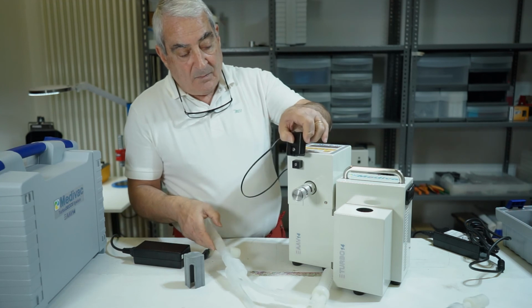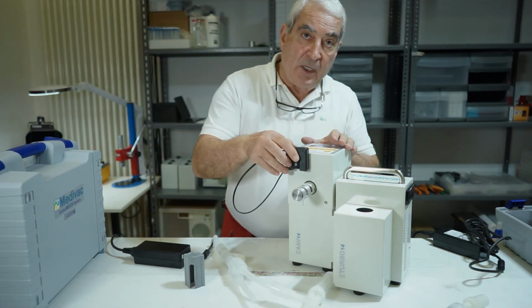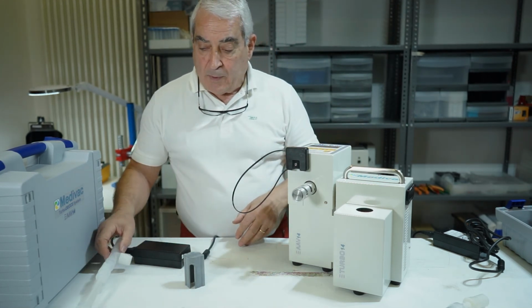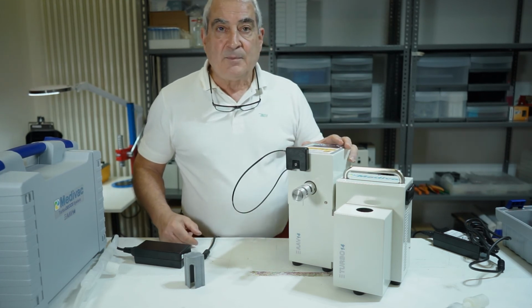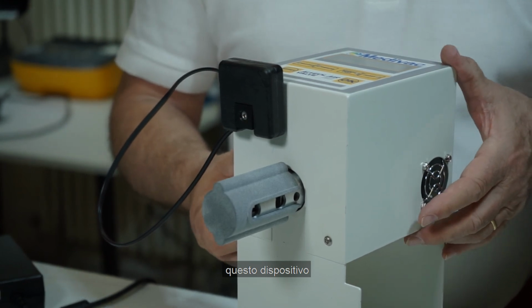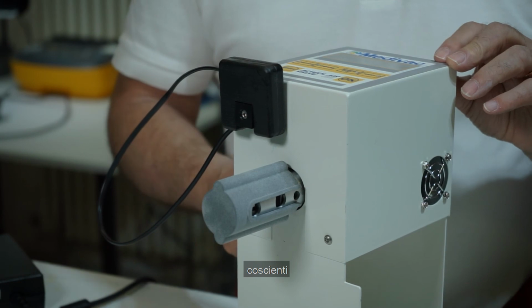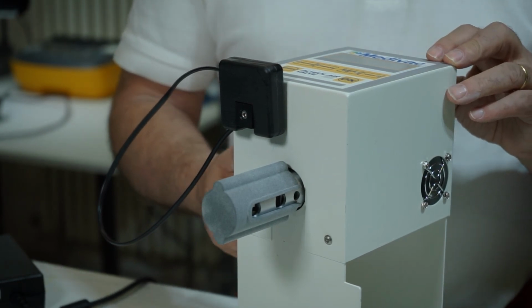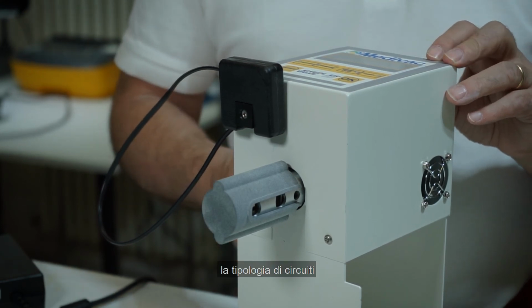It can be used by itself in case we want to collect VOCs, or it can be utilized in the most common use together with a turbo for collecting alveolar condensed exhaled breath. Important: the instrument can be used with both conscious or ventilated patients. Clearly, the type of circuit used changes depending on its use.